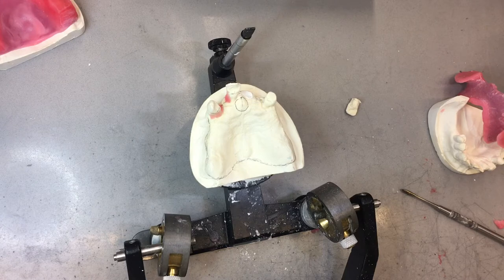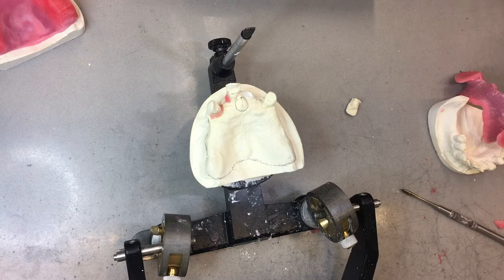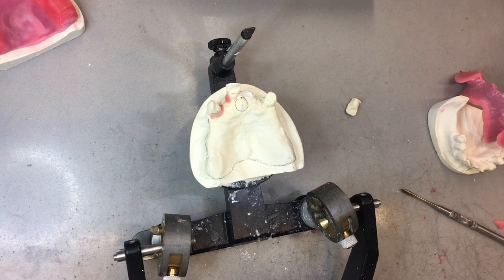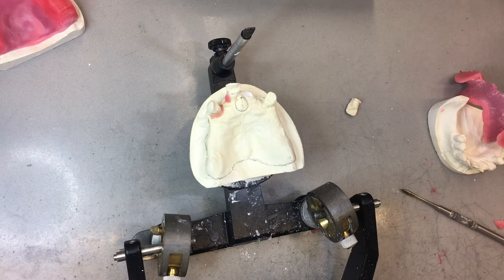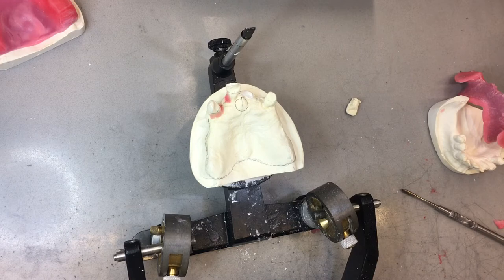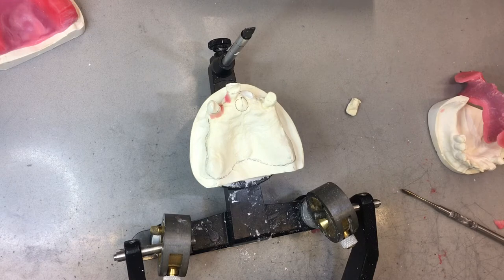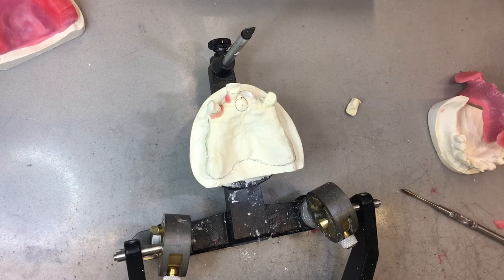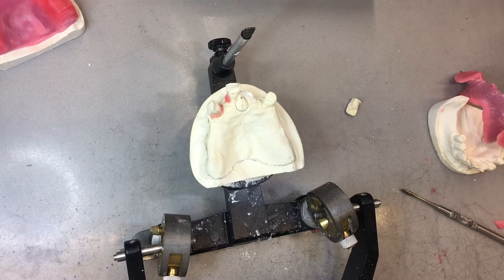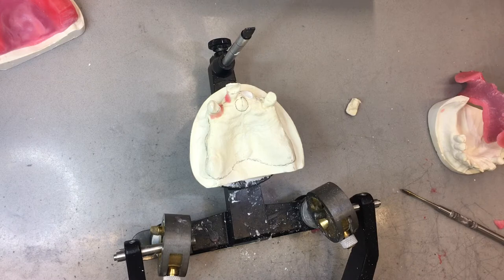Immediate dentures is the most difficult thing. You can get the teeth taken out all at once, but a more prudent method would be to take out the posterior teeth first, let the patient heal three to four months. Like this case — it's a real case — then at least we have a positive seat of the full denture in the posterior section. Now you have a vertical stop of your base plate and your final denture. Many times they're losing all 28 or 30 teeth — we're losing a lot of vertical dimension and have no positive seat at all.